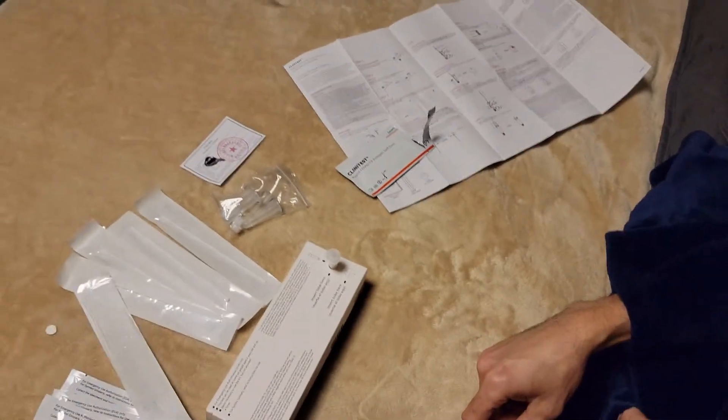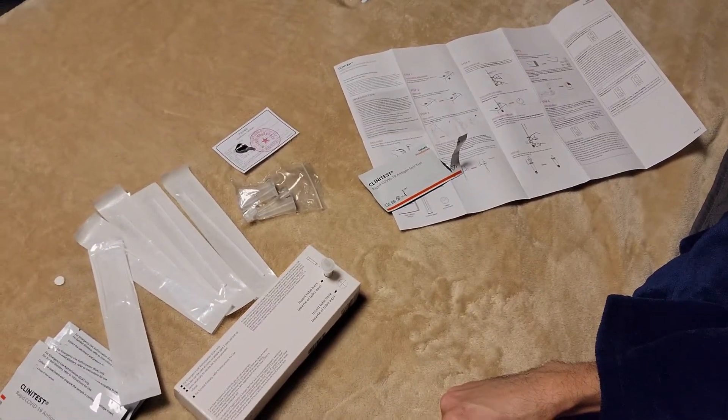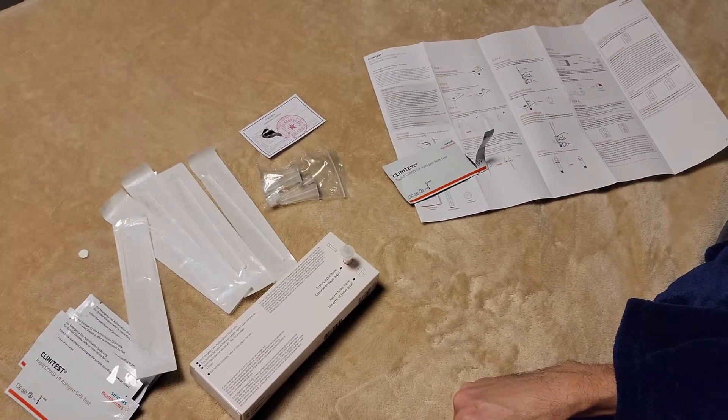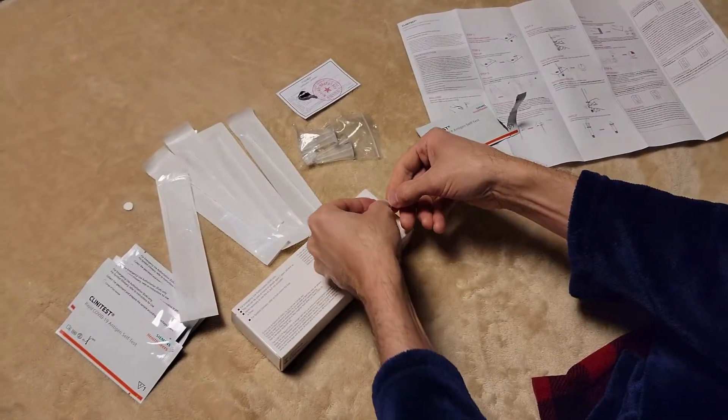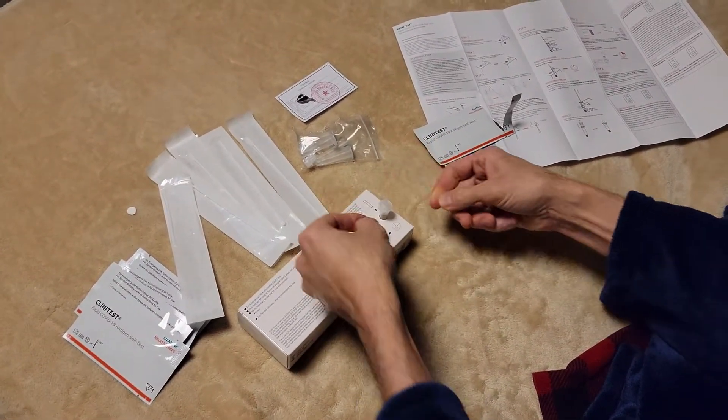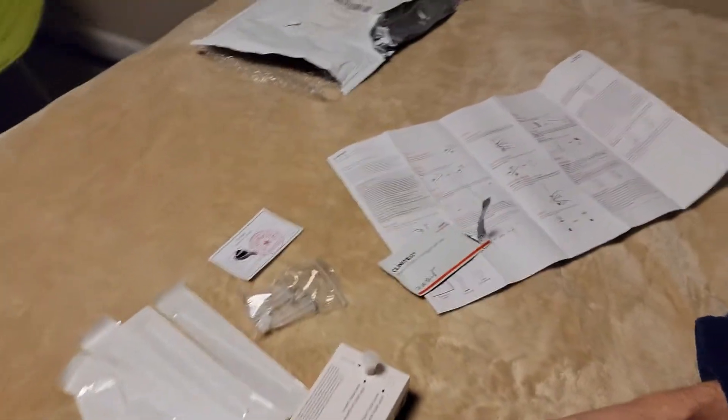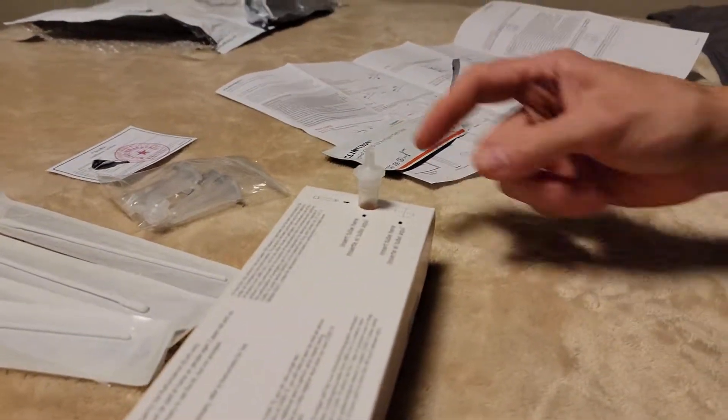And that's got to set for... Take the tube tip from the kit and push it in the top of the tube. Make sure there's a tight fit. Oh okay, it snaps into place. There we go. All right, so that's snapped in.